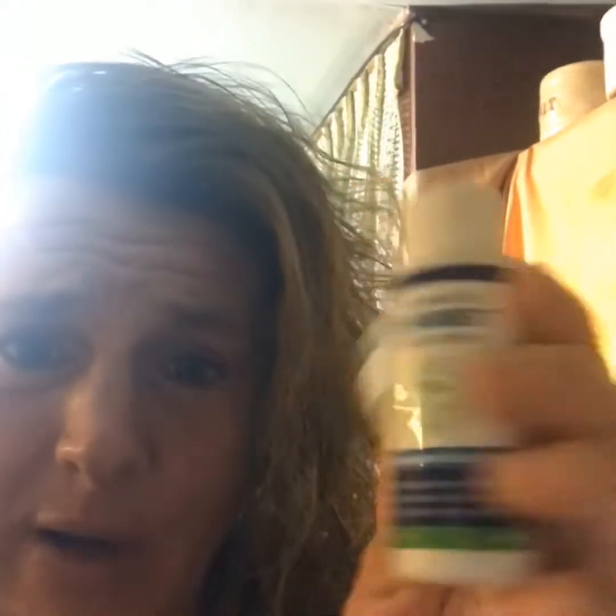The cleaning crystals now have a travel size — this is actually the travel size. I don't have one of the big ones to show you, but it is a pump. Let me find some good light. It's a little bottle and it comes with a pump. What I do is I put two or three squirts in the bottom of a coffee mug, which I use to soak my denture, then mix it with some warm or hot tap water and soak my denture for about 15 minutes in the morning.